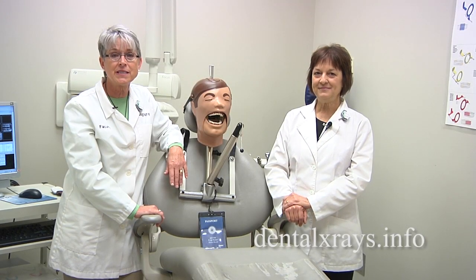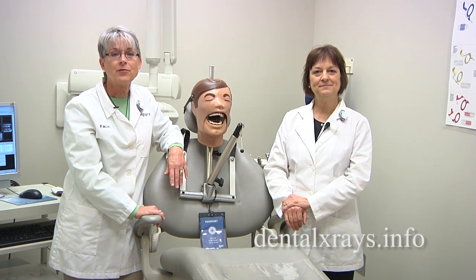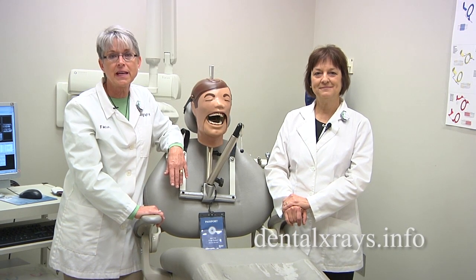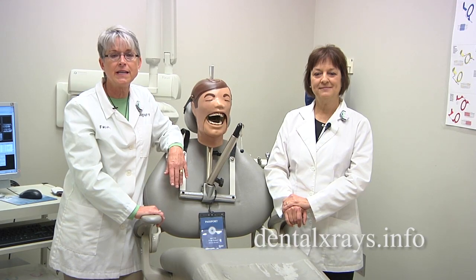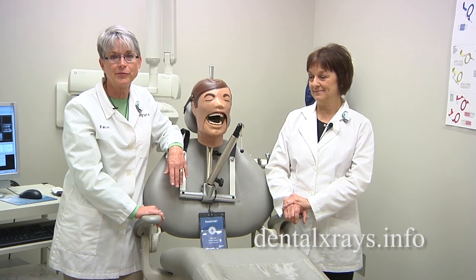Hi, I'm Sherry Ortiz and I'm Vicki Romans from Ask the Experts on DentalXRays.info. This session is going to describe what bisecting angle is and actually how to use it.